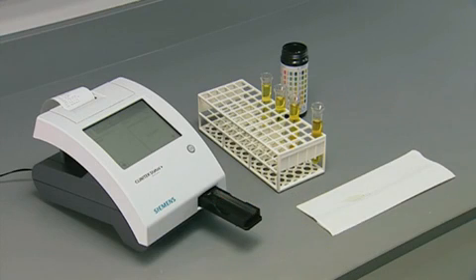Remove the used test strip from the analyzer. Dispose of the test strip and report results according to the procedures specified at your facility.